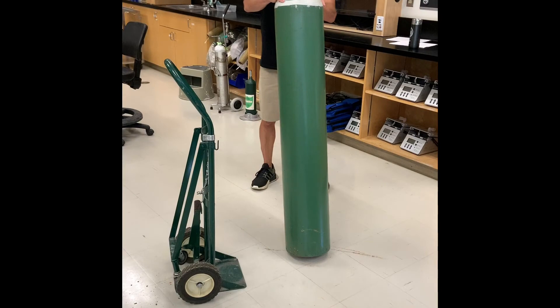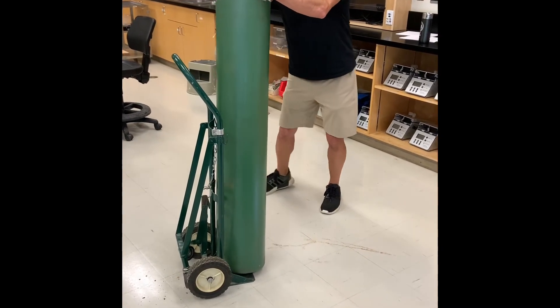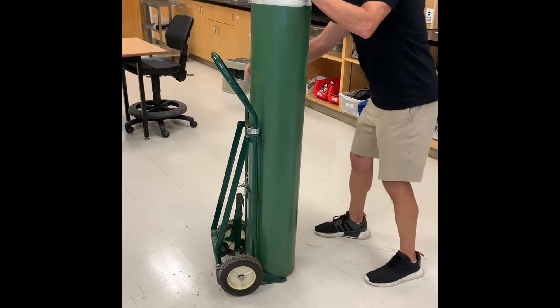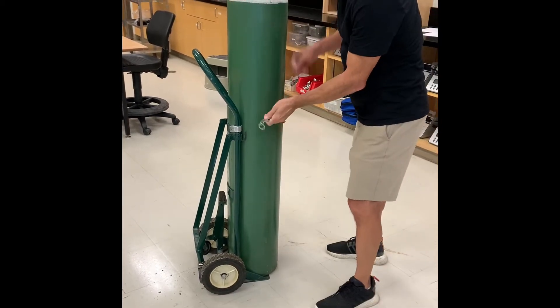You may need to move your medical gas cylinder back onto the hand truck in order to transport it somewhere else. Keep the cylinder in the center of your body, rolling it on its edge, and position it onto the hand truck. Hang onto the shoulder — the white part of this cylinder — with one hand, and grasp and secure the chain of the hand truck.